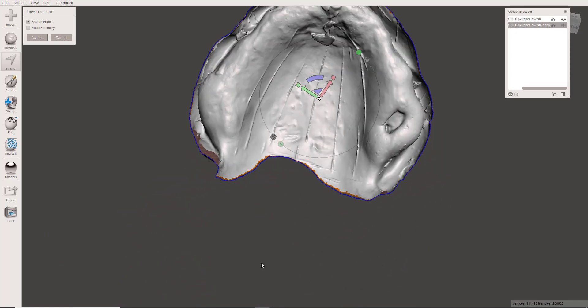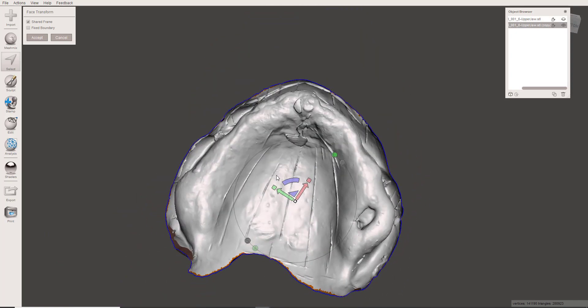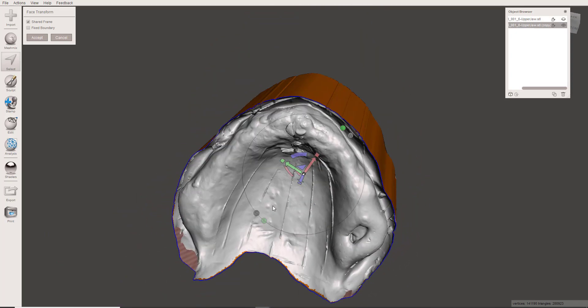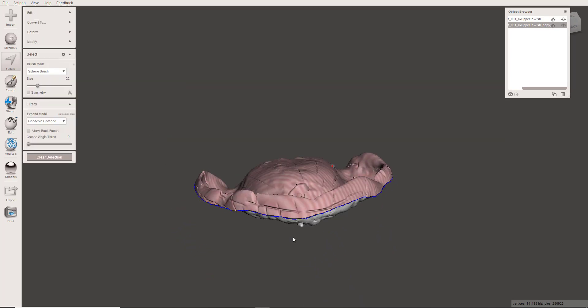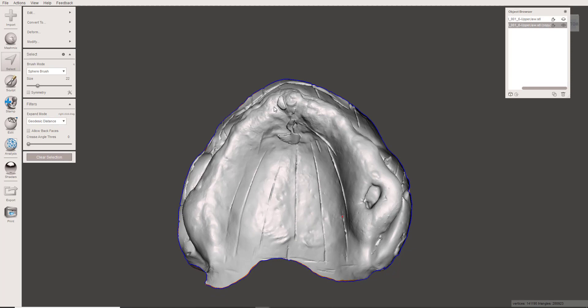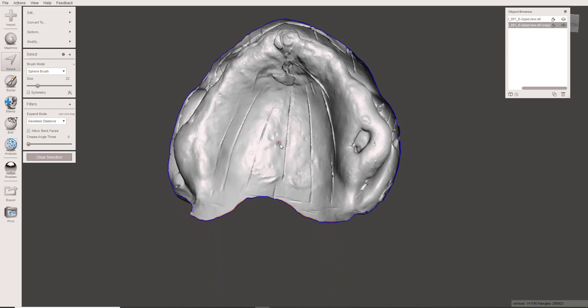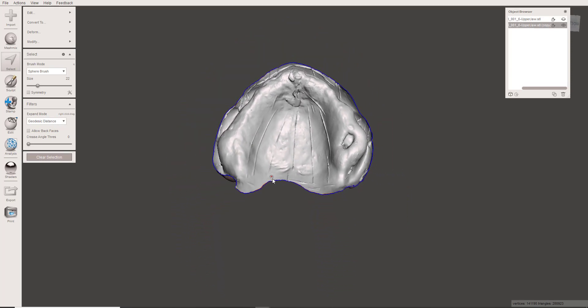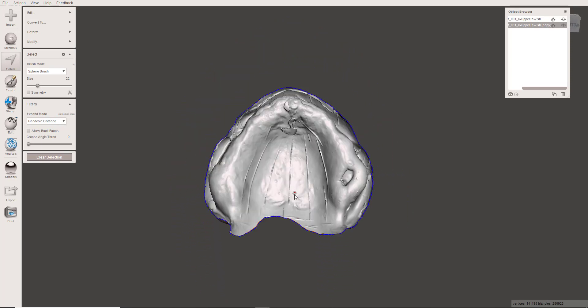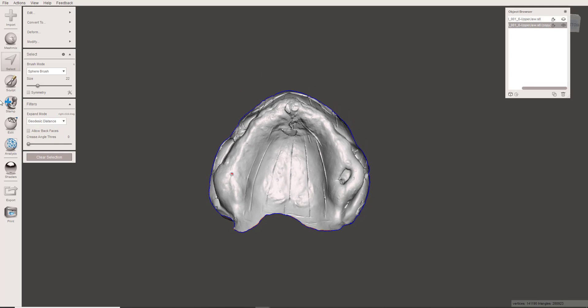Furthermore, even if you didn't have those, you don't have a land area, and land areas are important in a lot of different respects in removable dentures. So this was a problem that really was driving me nuts for a little while, and the solution is actually pretty simple.